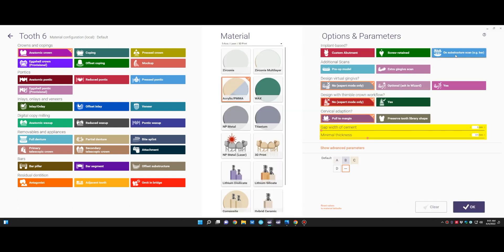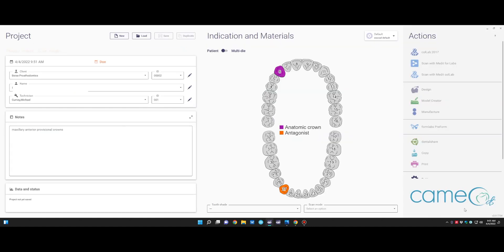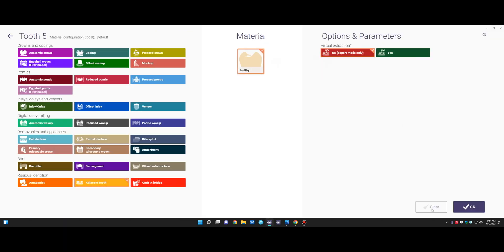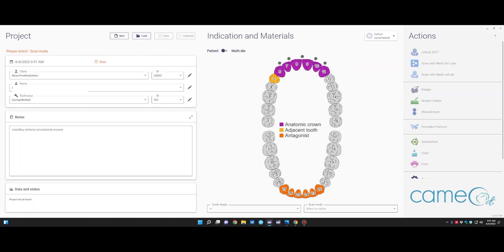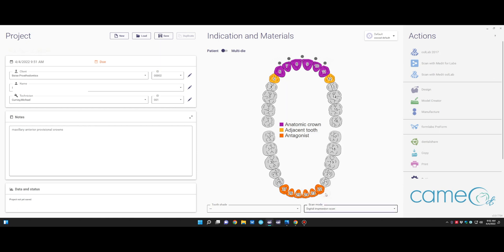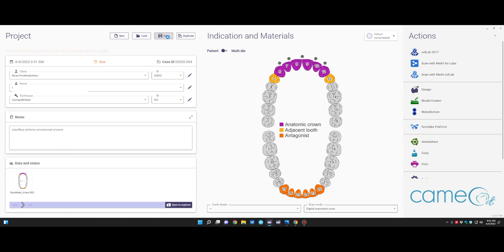These anatomic crowns we're going to make out of acrylic. We'll have a pre-op model in this case. That way we can align to our smile creator. Click OK, hit Control, and click on all the other teeth that we're going to be doing. Any teeth that are remaining that we're not going to crown, you can put in as adjacent teeth, and then click on a digital impression. This way, when we save it, we go into design it, we can find our STL files from our TRIOS impression.